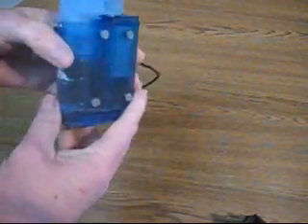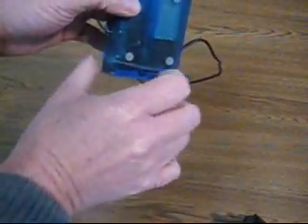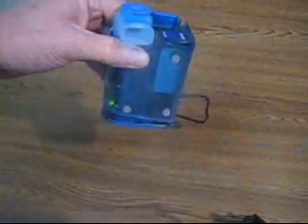Hi, today we want to demonstrate the proper way to turn on and off your TransNeb compressor nebulizer. If you look at your compressor nebulizer, you have an on-off switch here. And very simply, just by placing your thumb over the switch, grabbing your unit, and squeeze slightly, the machine will operate.